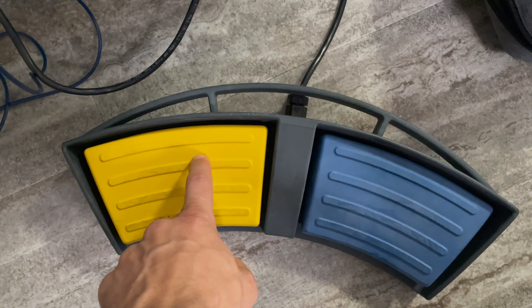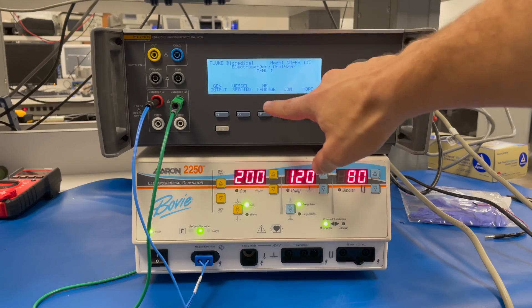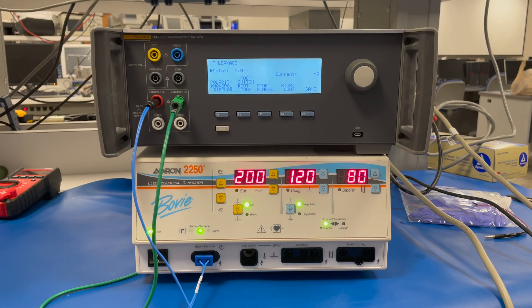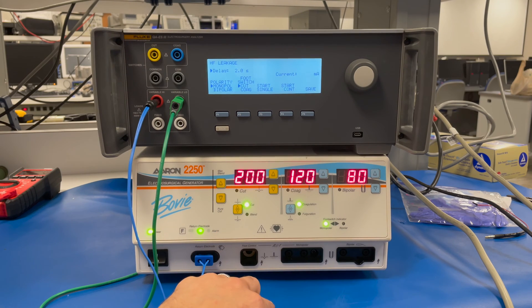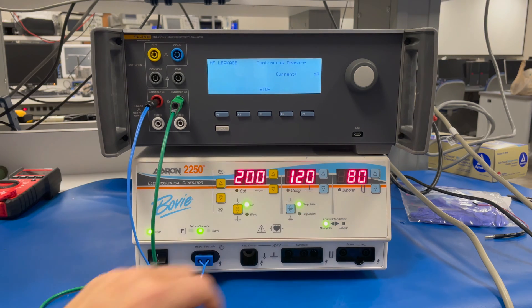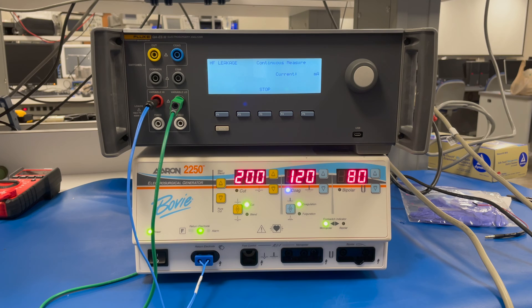Connect the foot switch to the back of the unit. Once you get it situated correctly, you should be set to go. We want to go to high frequency leakage, which is going to create a 200 ohm resistance in the circuit — the HF leakage test defaults to 200 ohms. Make sure your cut and coag are all set to the highest possible settings for your particular unit, then hit start continuous. As you press down on the foot pedals, you'll get a reading for the high frequency leakage for cut, and then coag.